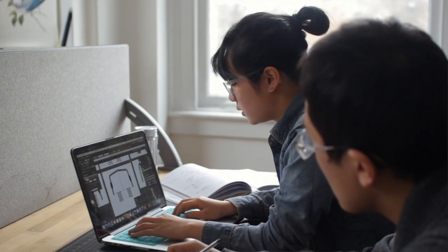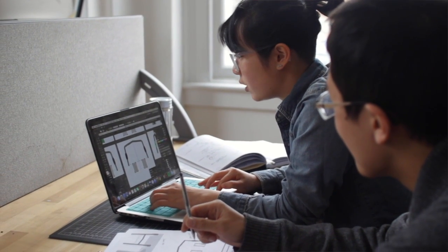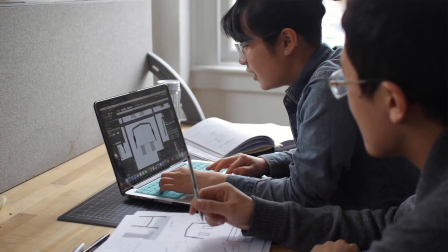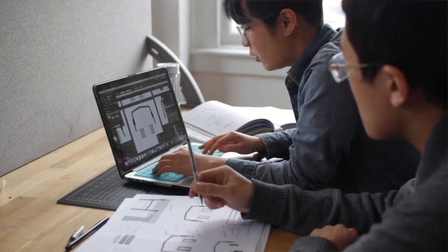Everything about NAYAN is elderly-friendly. Although seniors are instructed in the hospital settings, they often forget their training a few months later. The NAYAN app is designed to help remind seniors how to use the walker through step-by-step visual instructions and auditory cues.